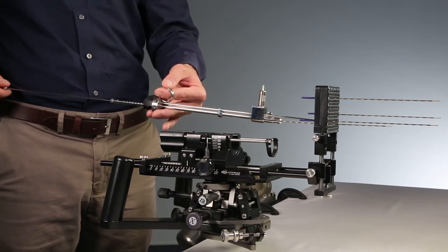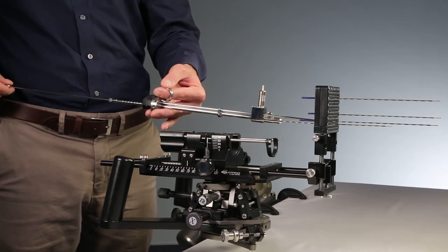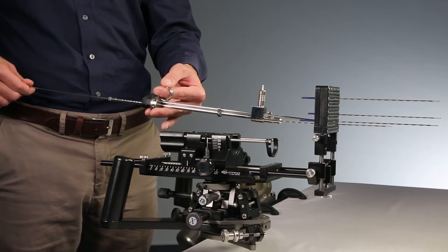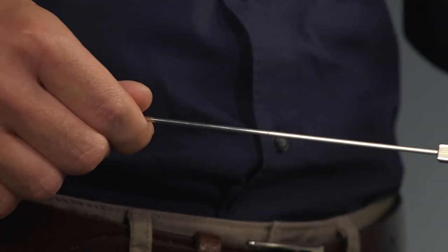In order to drop the first seed, advance the push wire rod as far forward as possible. But do it carefully and do not push further than to stop.